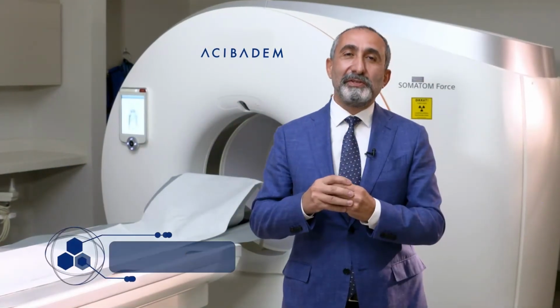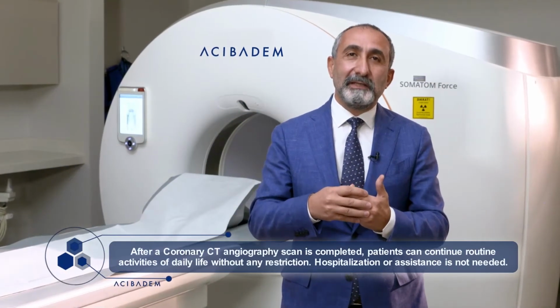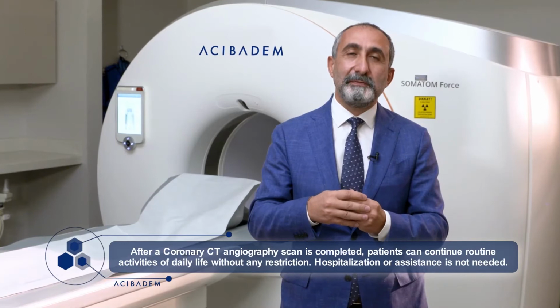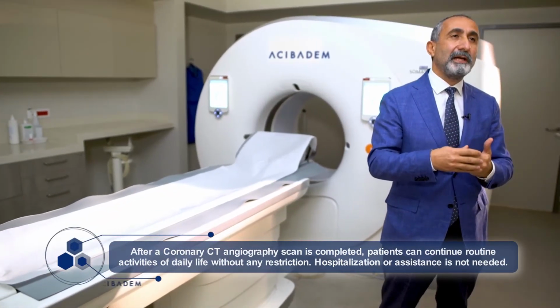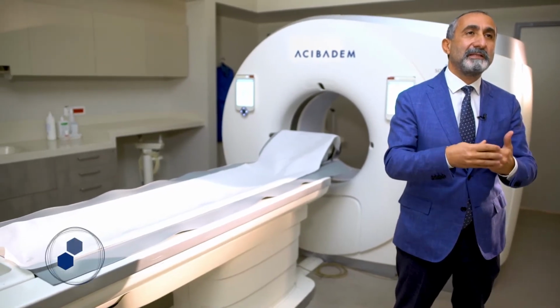After a coronary CT angiography scan is completed, patients can continue routine activities of daily life without any restriction. Patients do not require hospitalization or any assistance.